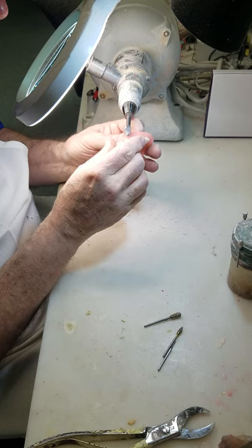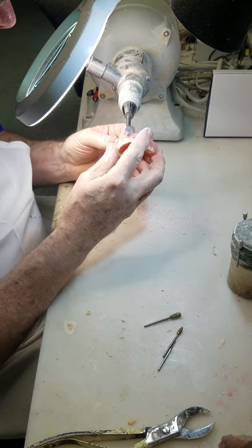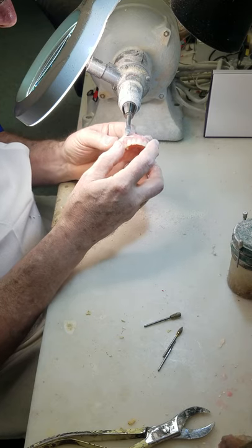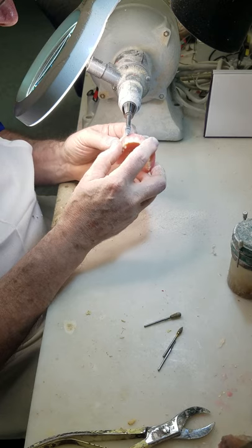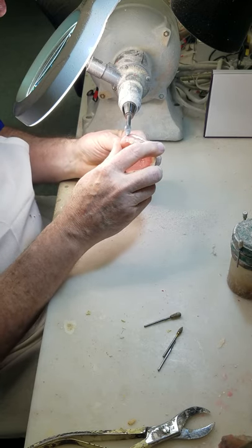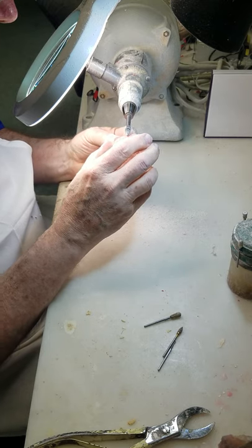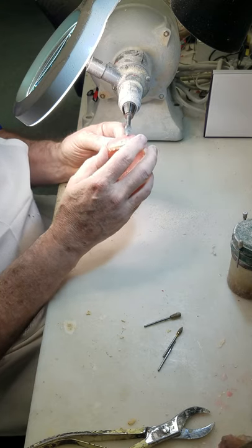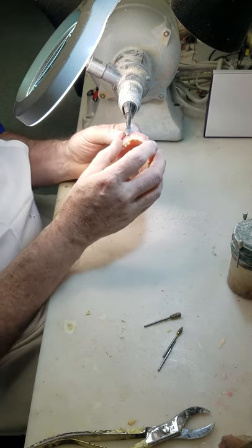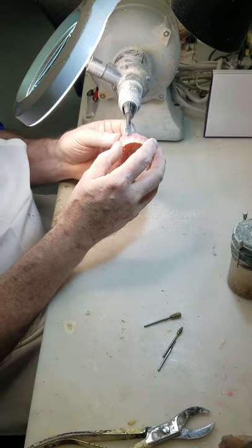There's a thickness cutting guide. I don't spend a lot of time cleaning up all this stone because the burr will take it right off anyway. But I like to tell trainees that dentures are a little bit like waterfalls — things flow from one point to the other. It flows from the neck of the tooth down to the surface. You don't want a big bulge there and you don't want a big gash either.